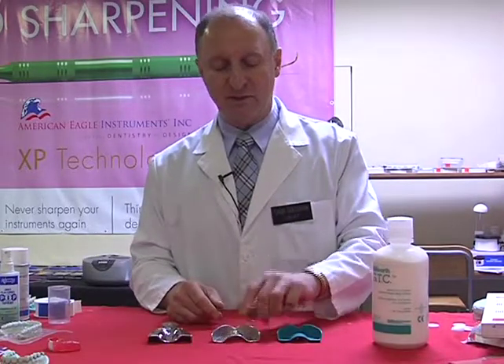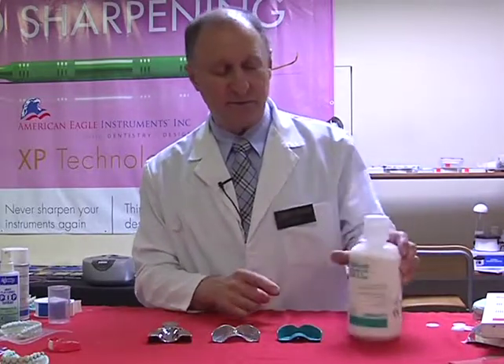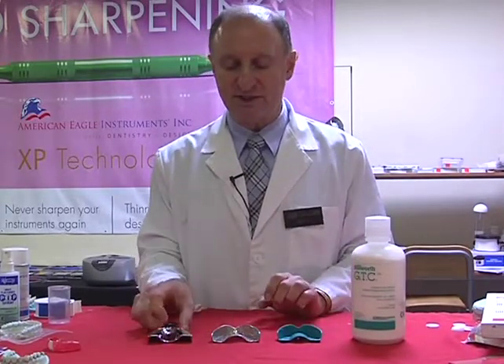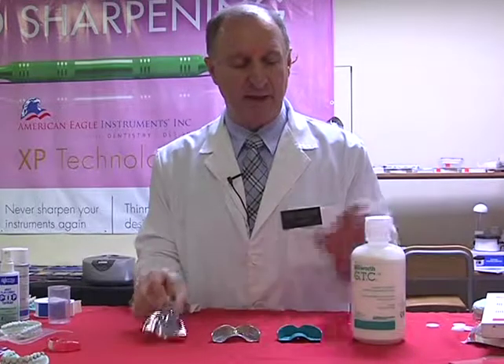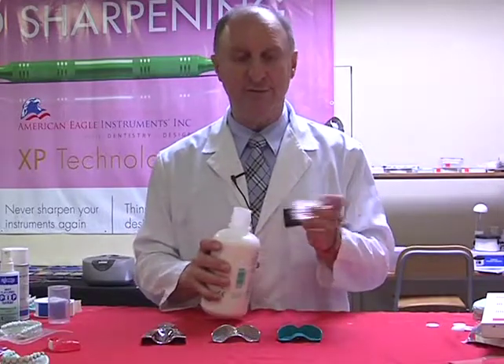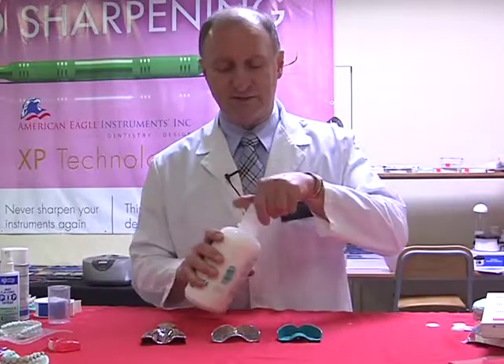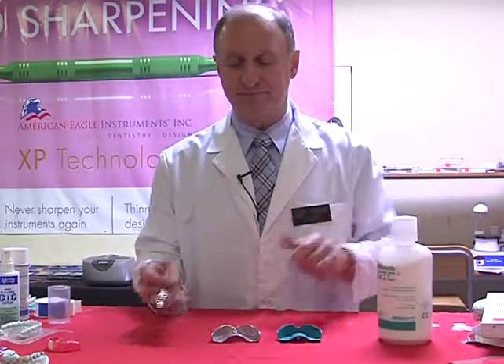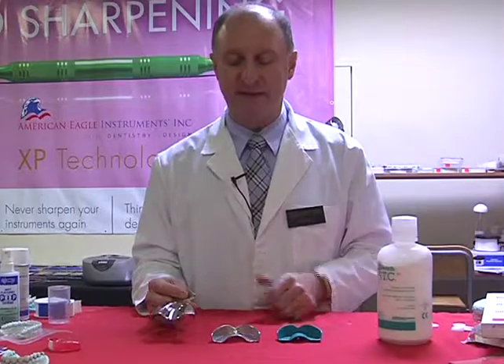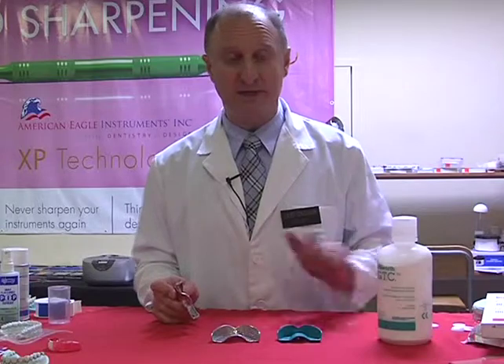Then they go into a soak solution that's going to remove any residue that was left inside. The general tray cleaner from Bosworth is probably one of the best. I've tried pretty much all the systems out there, and this produces a nice, shiny, clean surface of the impression tray. One capful, these crystals dissolve very quickly, so just a matter of dissolving them through in your regular bath of water. It dissolves fast, and then the trays are left to soak anywhere from 10 minutes through to overnight, but most times within a couple of hours. It will remove any residue of stone, plaster, as well as alginate.